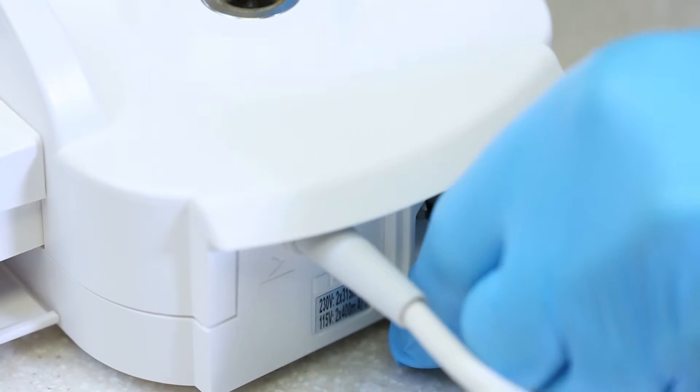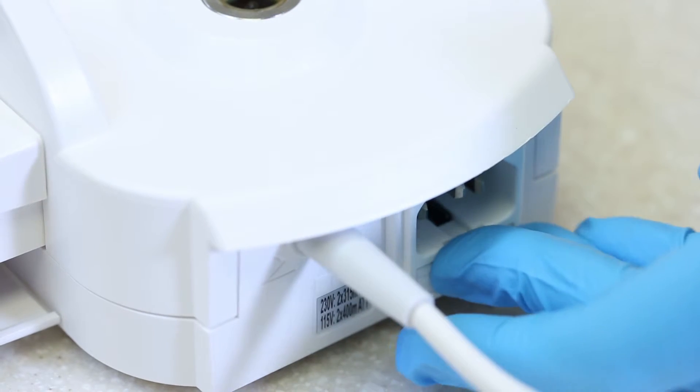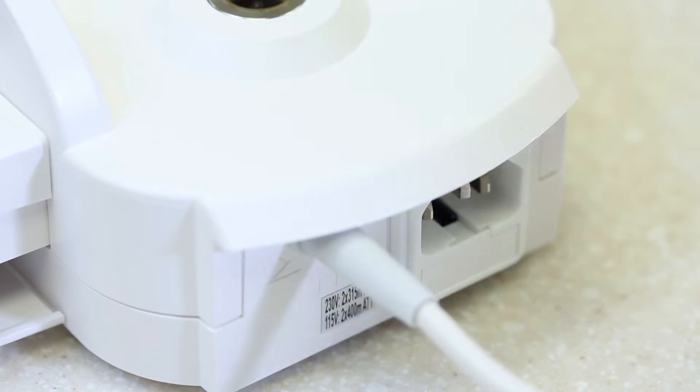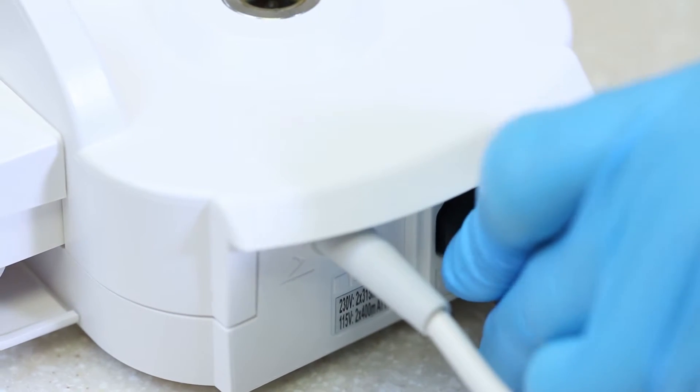Then, slide the fuse holder back into place until you hear an audible click. Reattach the power cord and check that power is coming to the unit.